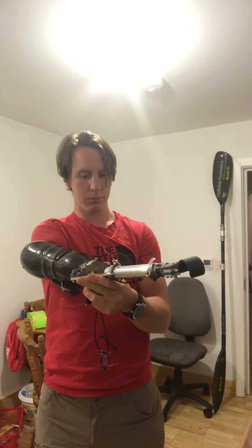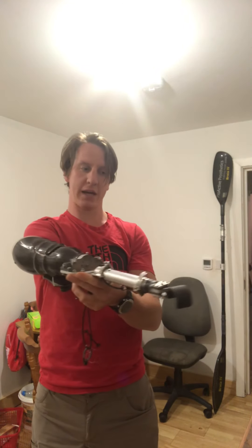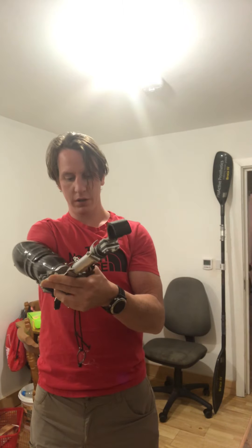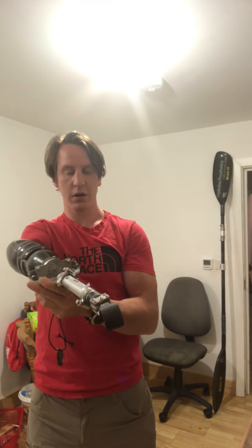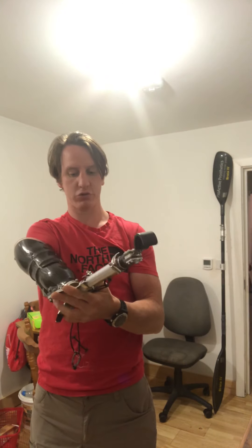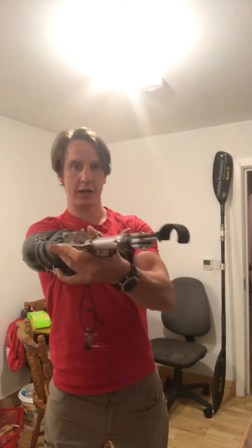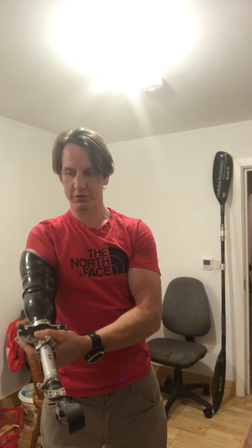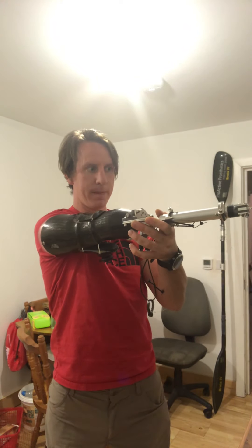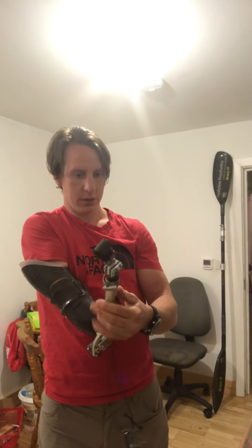When you're stood up with your blades and you're not in the water, the motion it creates — I can show you a video of us testing it until the part broke — actually feels really nice. But then I realized the issue: I've got no control over when that elbow breaks and then straightens. If I put a stroke in on the right side, the elbow would just start to bend and I'd lose a whole load of power, and then it would probably straighten too early.